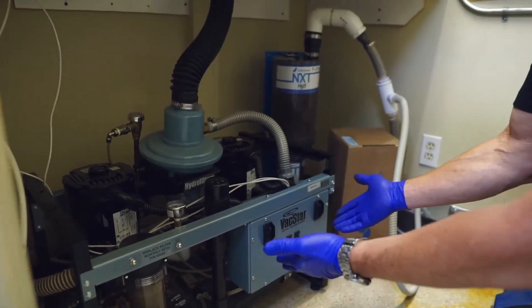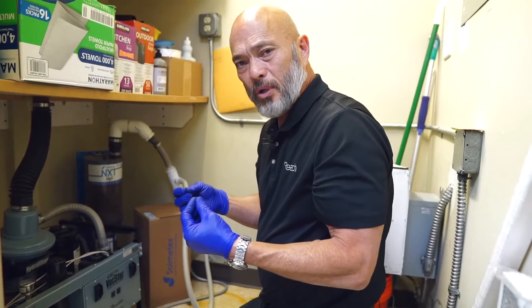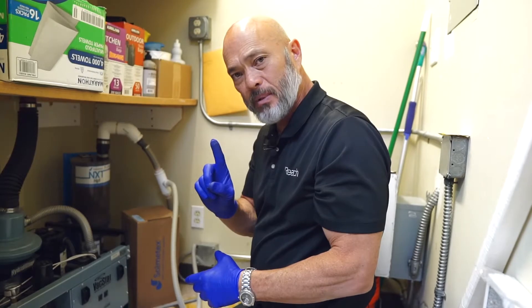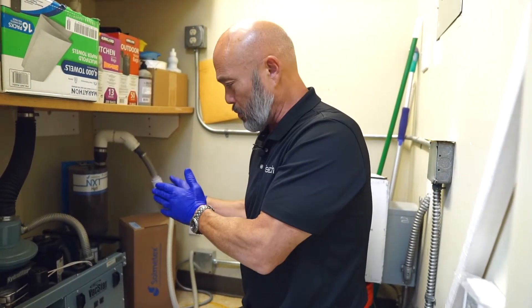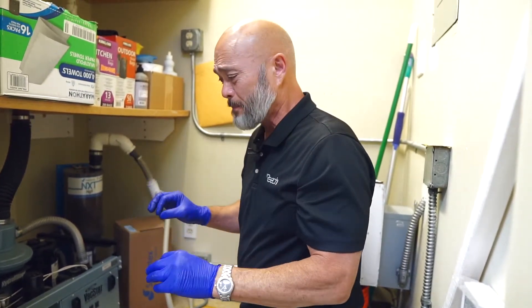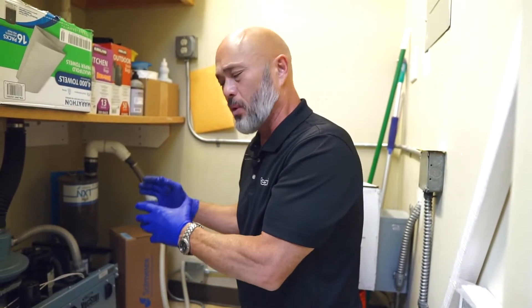Basic operation is making sure that the breakers are on and using your remote switches to turn them on and off. If the vacuum is strong enough by running one vacuum at a time, it'll extend the life of your vacuum overall — just alternate between pumps. Odd days run one pump, even days run the next. That's how a lot of offices do it — they'll label the switches. On heavy days, just switch both of them on, but if the vacuum is adequate enough to run just one during the day, that'll extend the life.